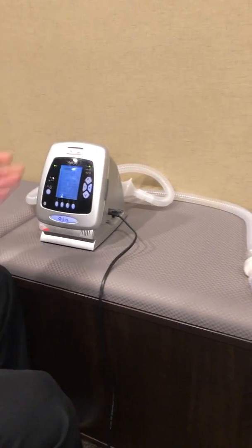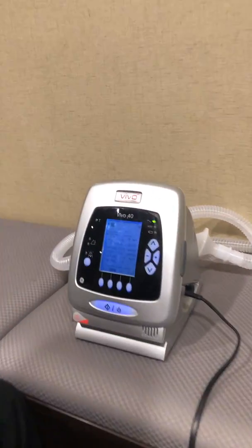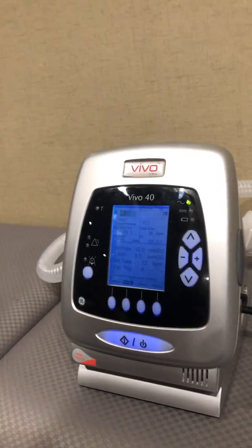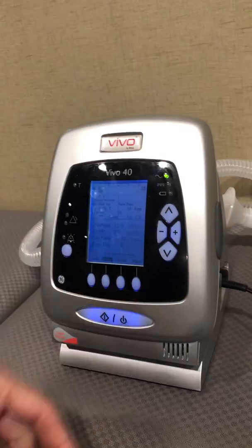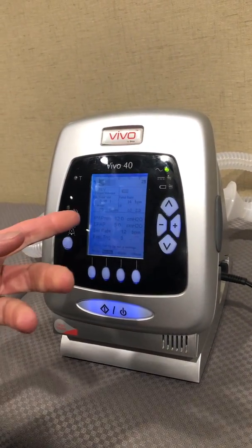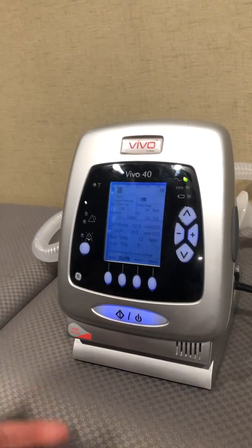Our IPAP pressure is going to continue to rise until we get to our 500 tidal volume target. I disconnected everything so you can see it went back down, but this will eventually get there.